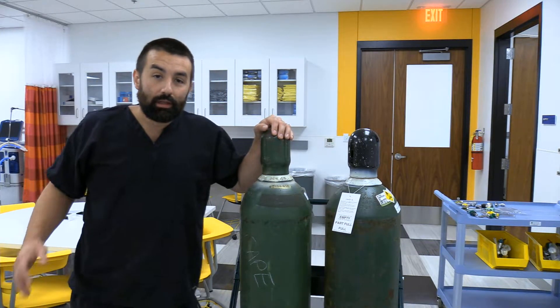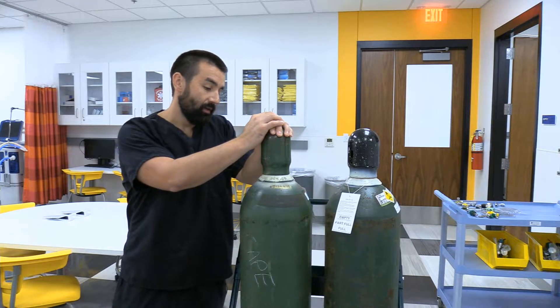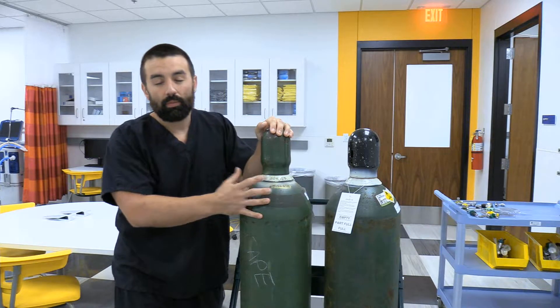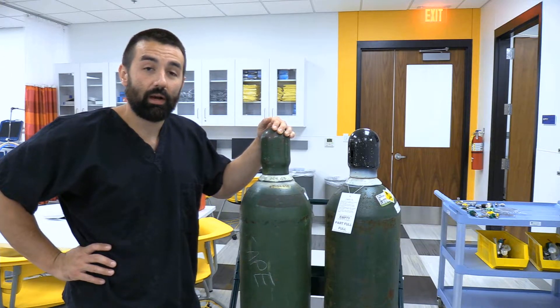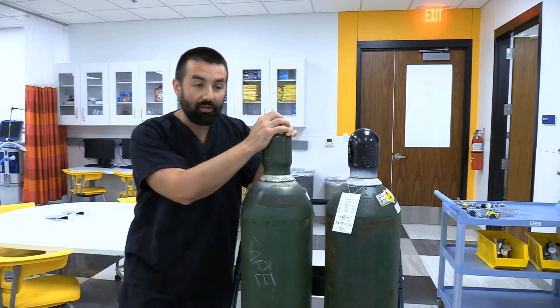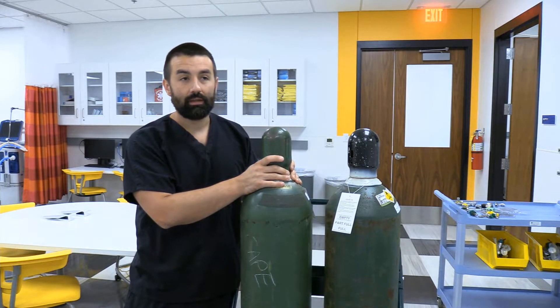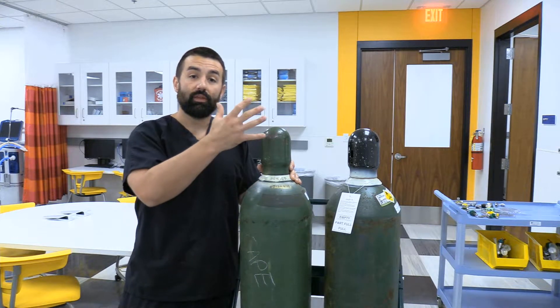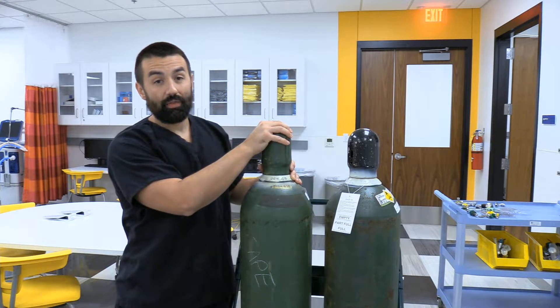I'm going to do a little video about H cylinders for medical gas. As you can see, this is a green tank, so we're primarily talking about oxygen. The skill set required to hook a regulator up and reduce pressure from high down to standard working at 50 psi is very similar. This is not a skill we commonly get tasked with anymore — we're fortunate enough in most modern facilities to have piped-in 50 psi medical oxygen and medical air throughout the hospital.